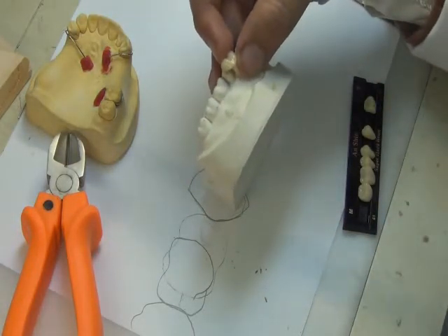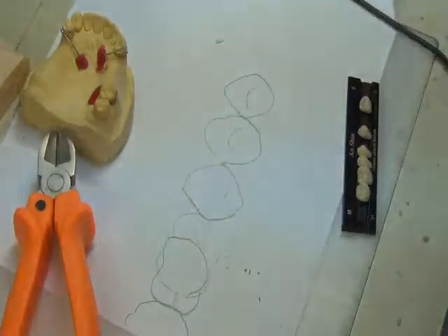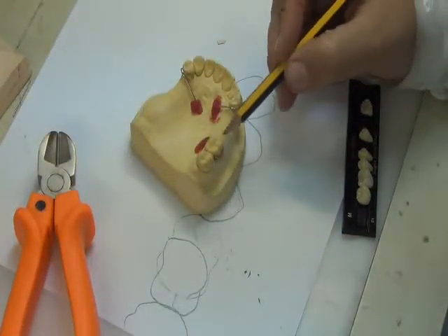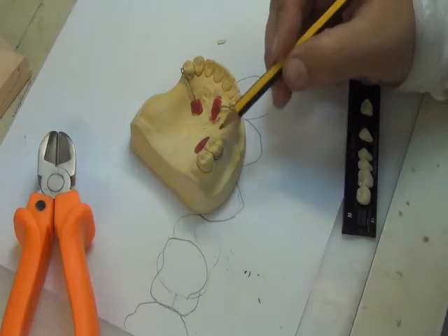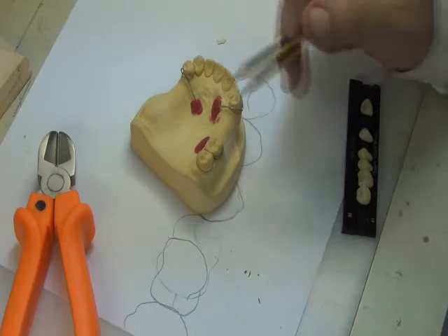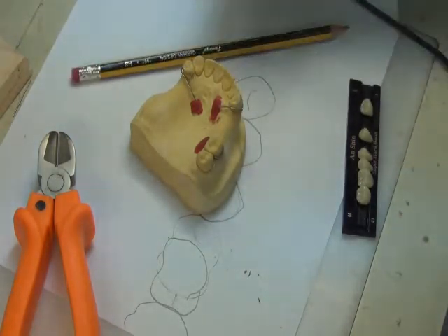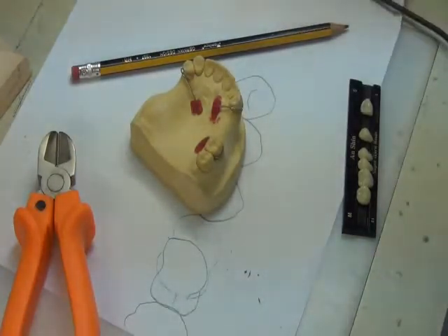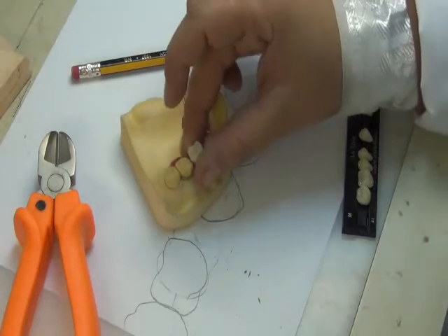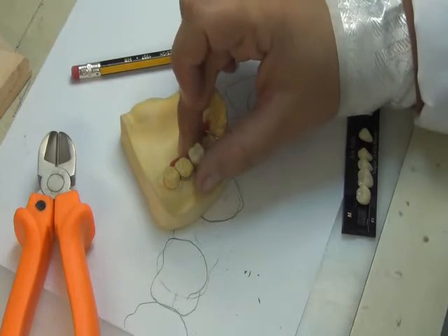Sometimes we are tight in terms of the location we're going to place the teeth, and some of the tightness comes from the saddle area, so we need to trim teeth in some cases. Meaning that mesodistally it's okay, the teeth fit, or with the space in between teeth, but I'm left that occlusally, when I put the tooth it is high. Suppose I'm using this one, and I'm putting the tooth and it's hitting the opposing tooth. In this case, we need to trim the teeth because it's high.